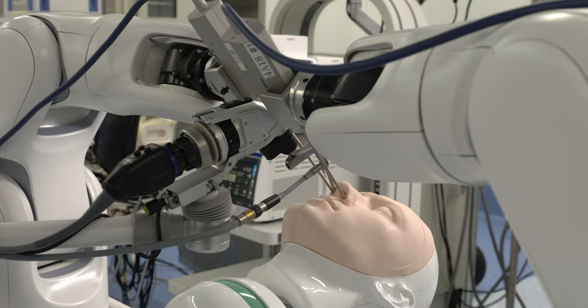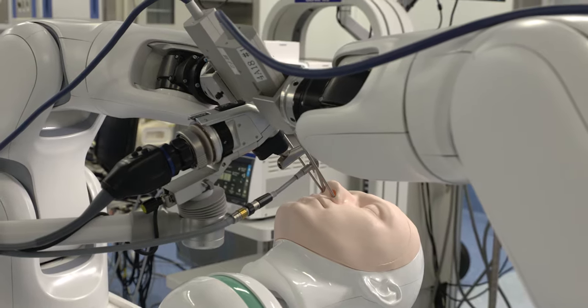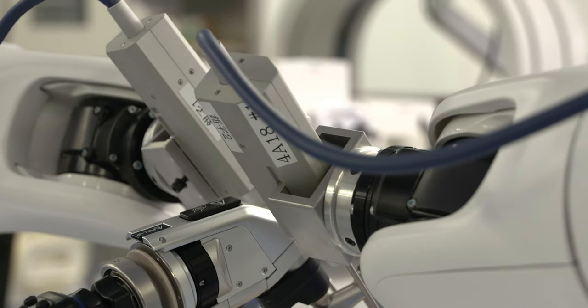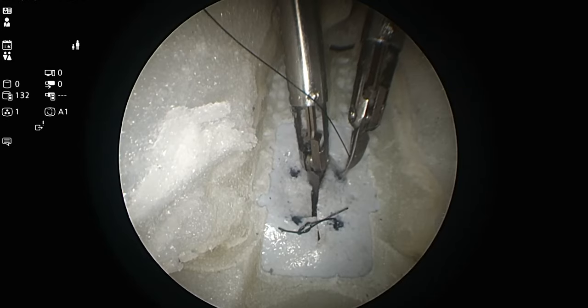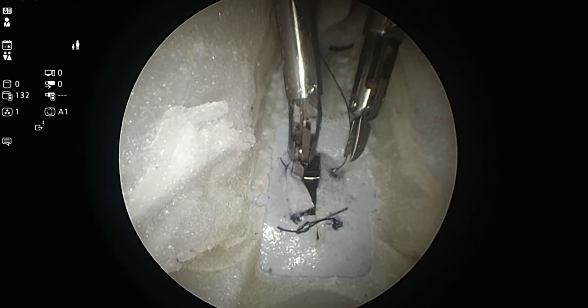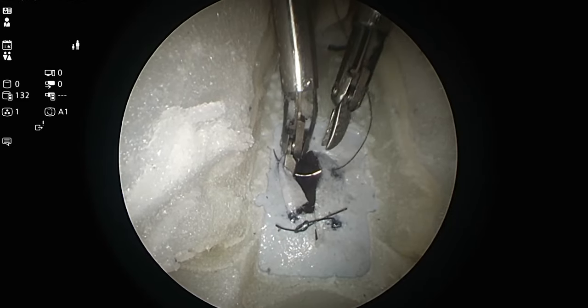We are also developing patient models to evaluate surgical robots before they are used on actual patients. In the future, we want to do clinical research using our robots to demonstrate that we can perform more safe and accurate surgery on real patients.